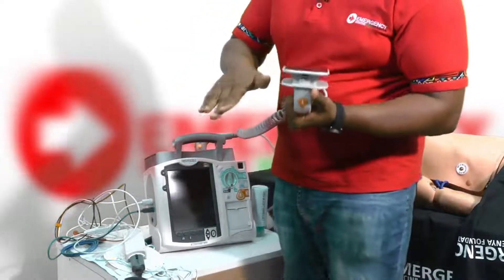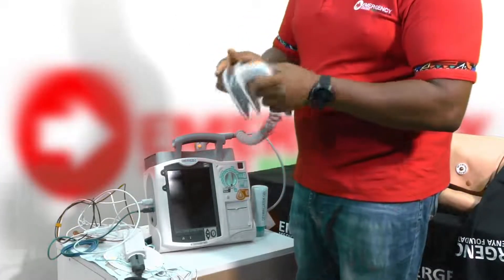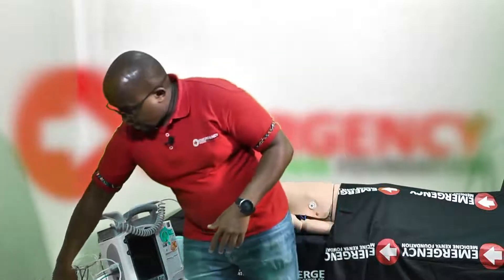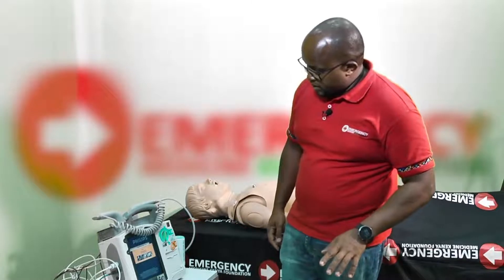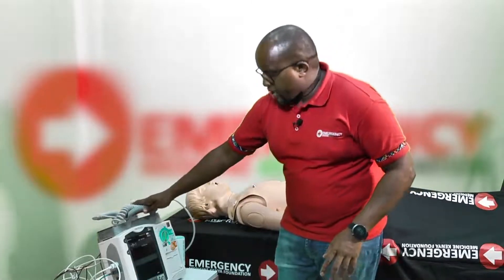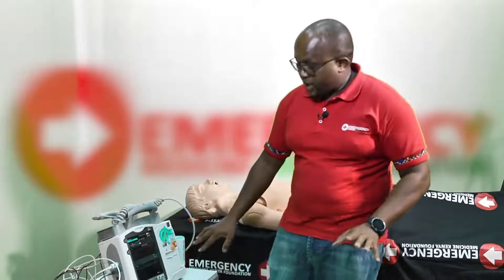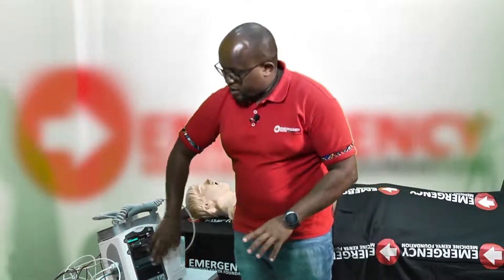I check paddle one and paddle two — clean, not pitted. I also check the pediatric paddle — clean, not pitted. Most defibrillators have an adult paddle and a pediatric attachment, since these machines can be used for both adults and pediatrics. Next I check that it switches on and there are no service messages indicating the machine needs to go for service.